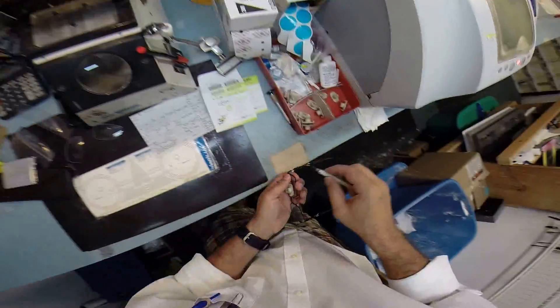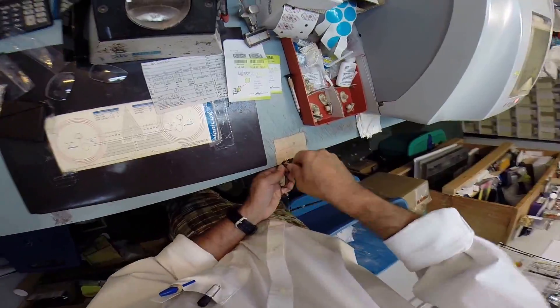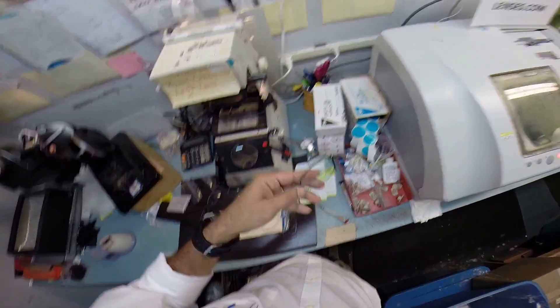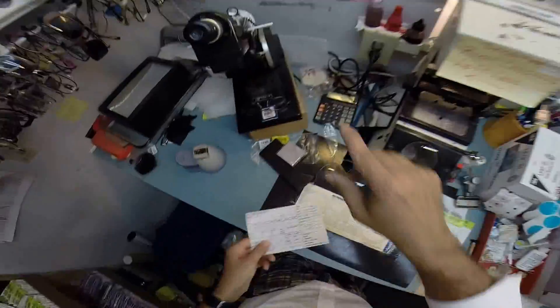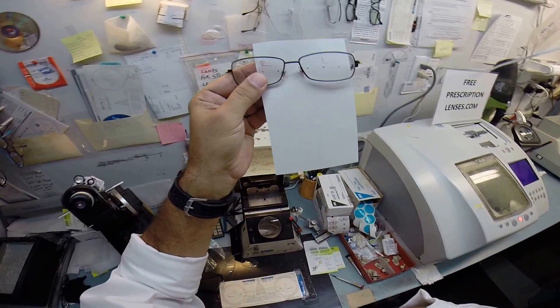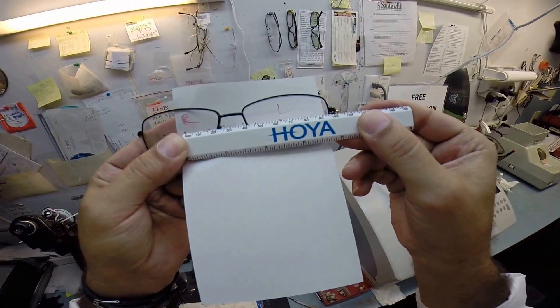I'll get that screw tightened down — make sure everything is lined up perfectly. There we go. That's looking better. So now I can go ahead and take this block off. I want to go ahead and verify the prescription of the left lens. I'm going to put it in my lensometer right above this red dot, put the axis wheel back to 179, and read the prescription of plus one minus one. Turn until the sphere power comes in clearly at plus one, and then minus one in astigmatism drops me down to zero — because when you add plus one and minus one together you get zero. Your pupillary distance is 62. So I'm going to put the zero on my PD stick against my thumb on your right lens, and when we hold it up on the left you see 62 millimeters. So that is cut perfectly.